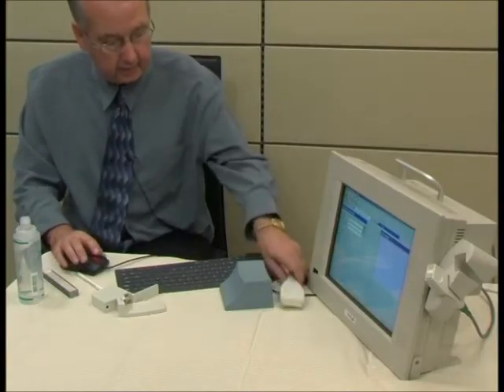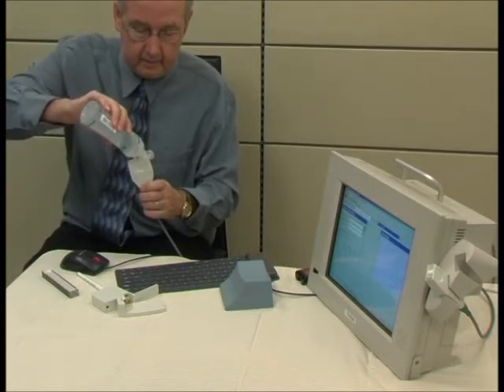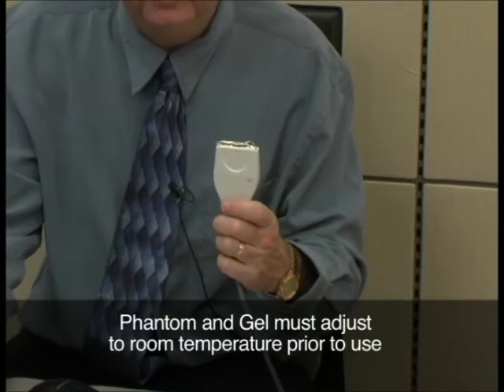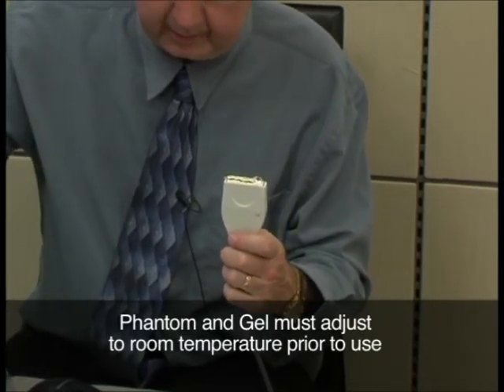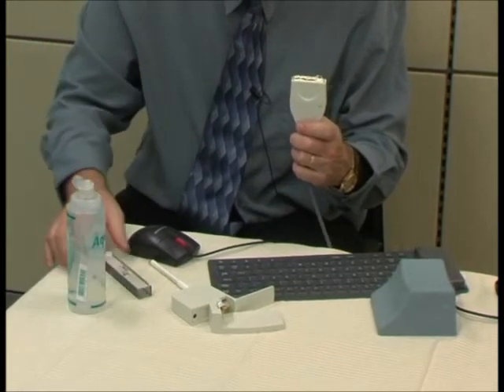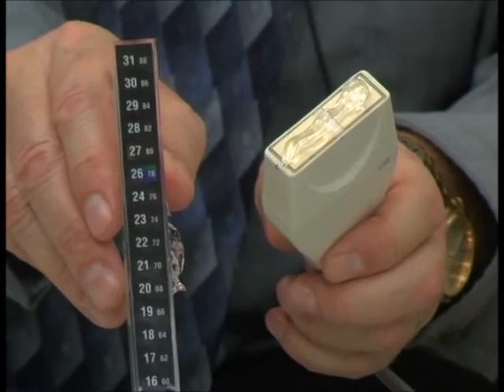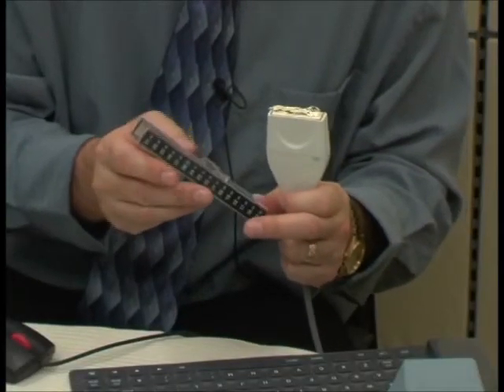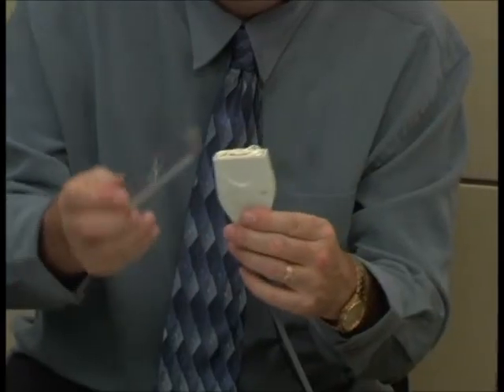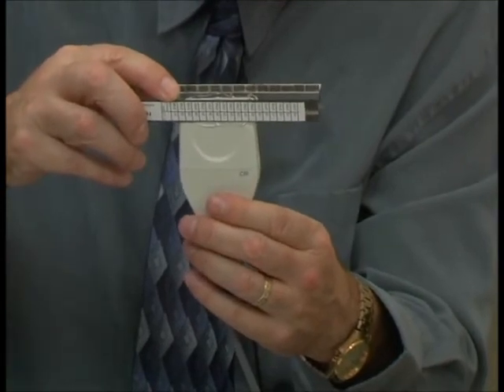Our next step is to take the probe and the lubrication and put an even roll of lubrication across the probe. We want to hold the probe vertically upwards and put a little bit of lubrication on the phantom as well. Remember, we're testing the speed of sound through the phantom. We need to look at the phantom temperature — on this one we have a temperature of 26. We look at the speed of sound at the back; the correction factor is 2751. Now we'll take the phantom and place it directly on top of the probe, making sure that there are no air bubbles between the probe and the phantom.